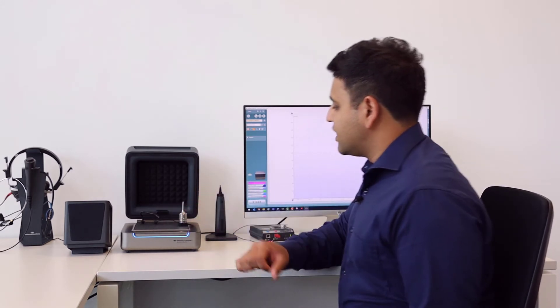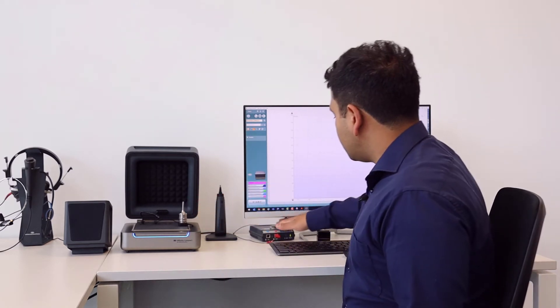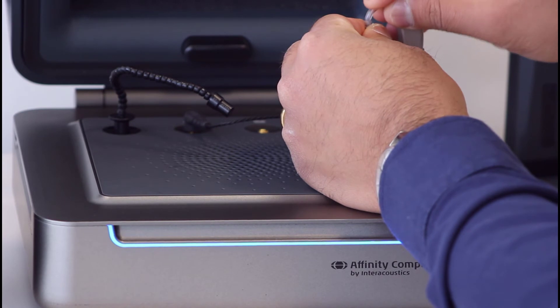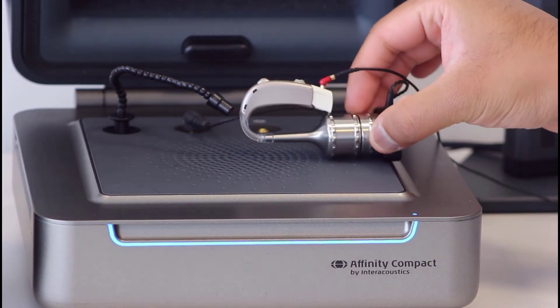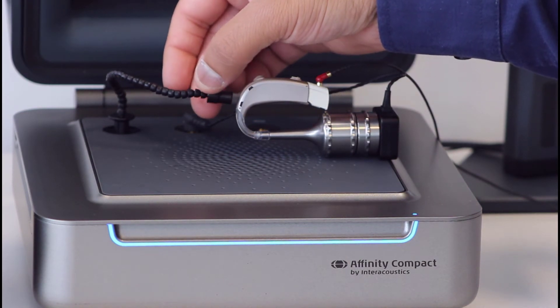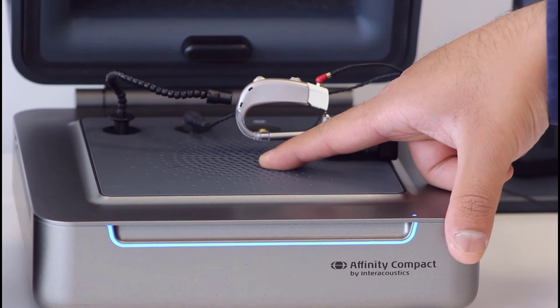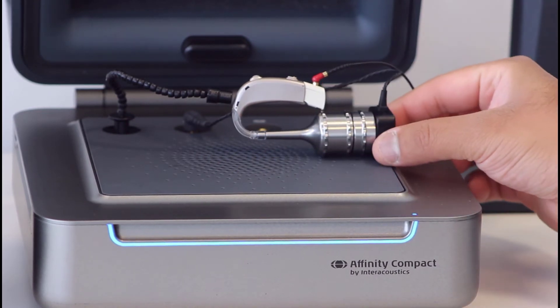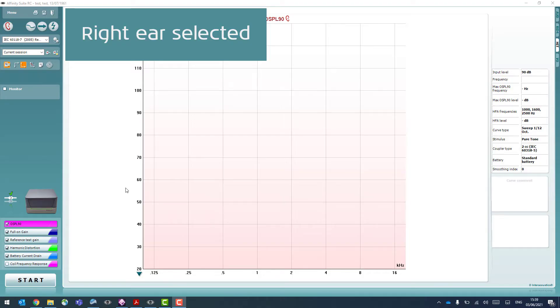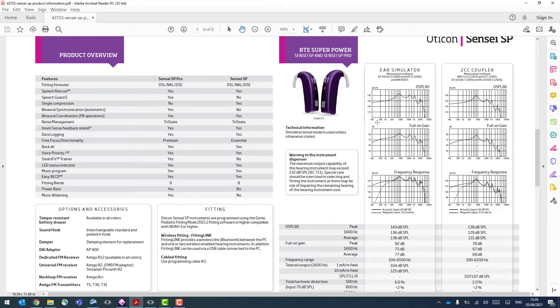Ahead of beginning testing for any clinical or technical hearing instrument measurements, we need to configure the test box with our device. I'll take my hearing aid, already connected to my hearing aid software, and couple that onto the coupler. It's important that when you position this in the box, the hearing aid and the reference mic are close but not touching and also orientated towards the centre of the box.